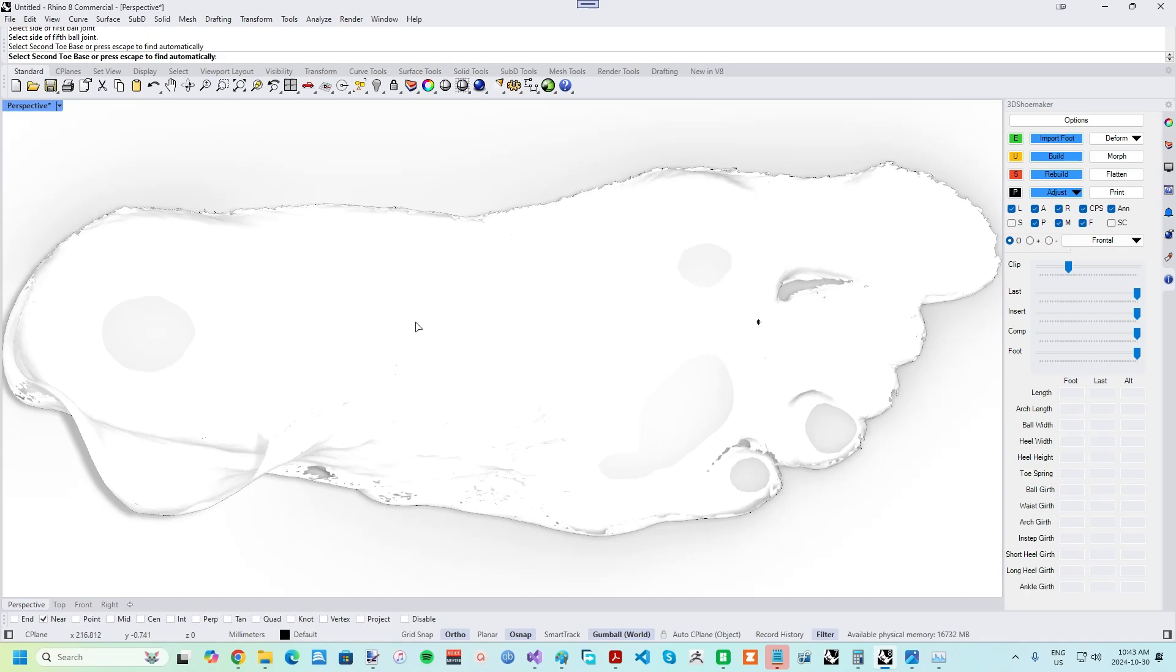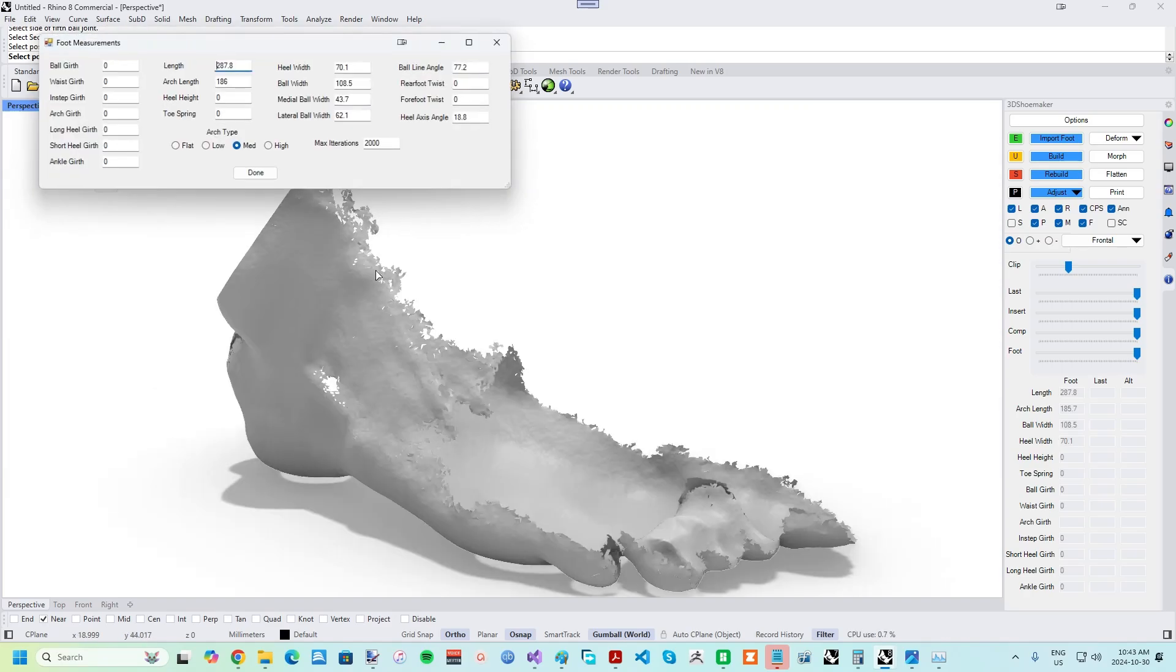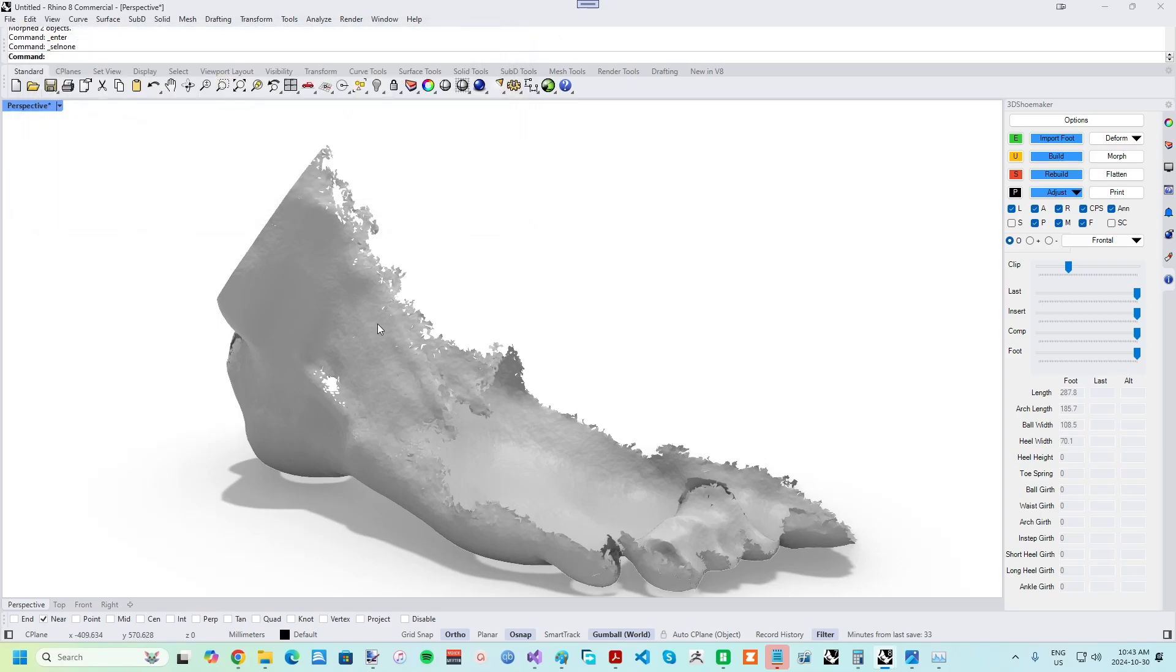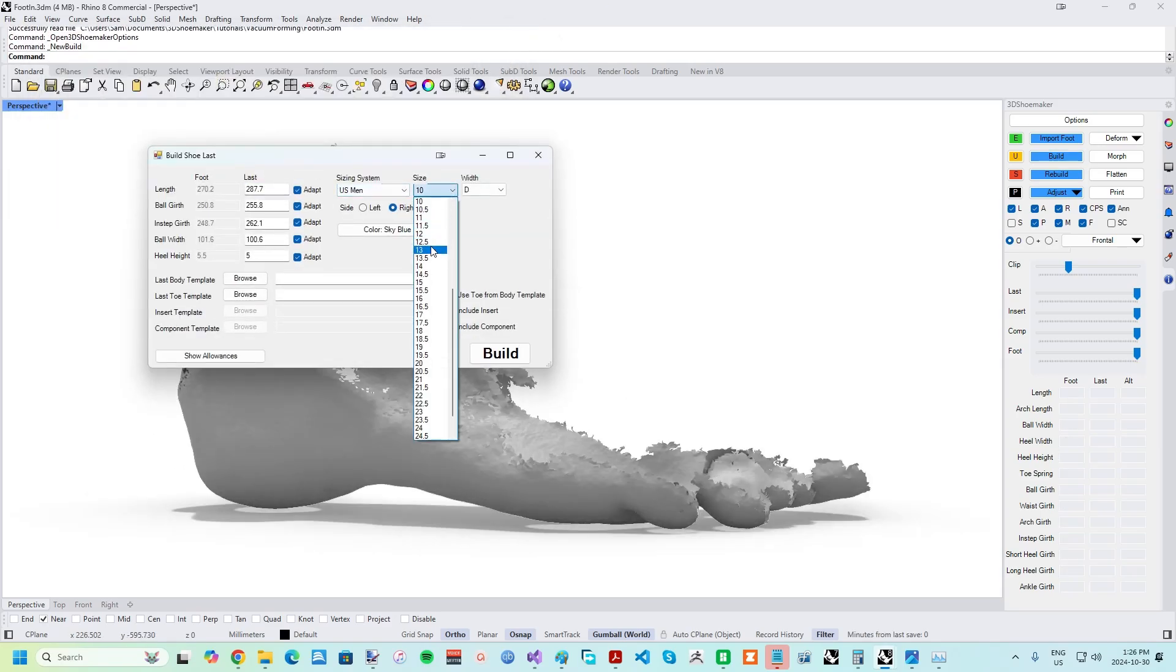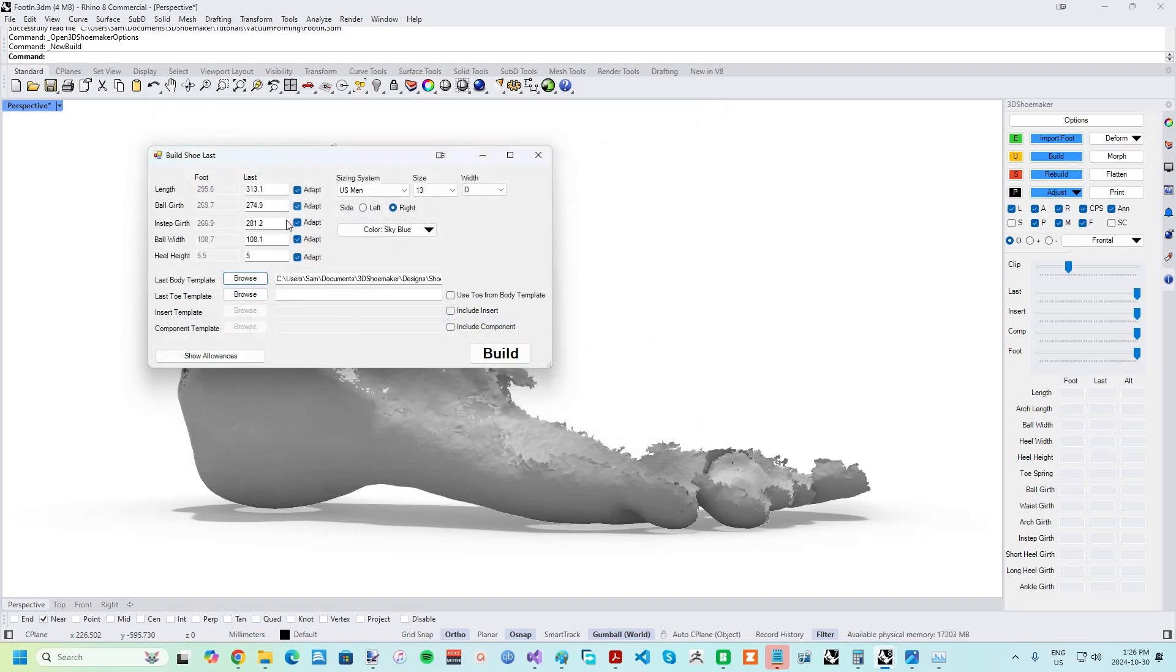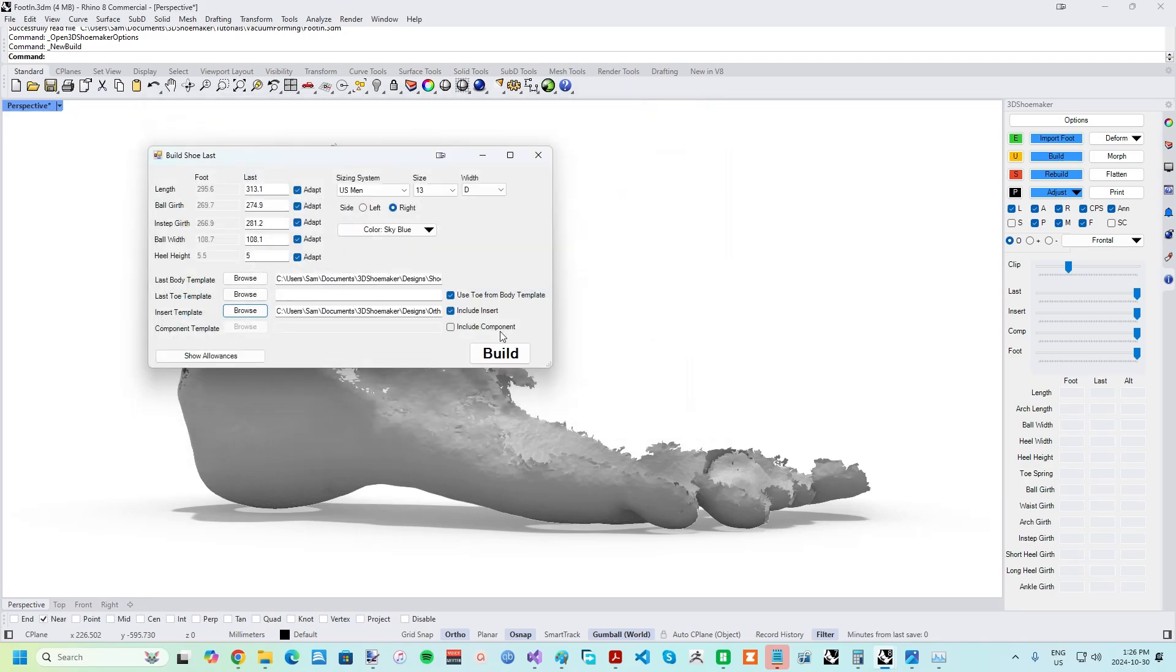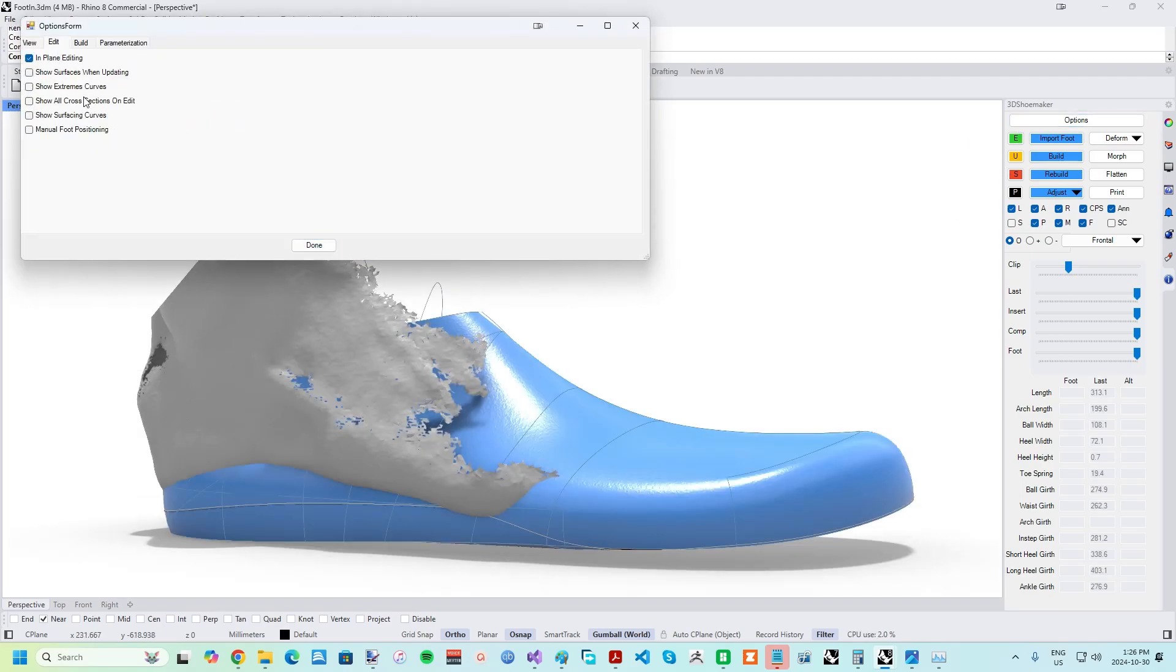The two measurements that might be adjusted at this point are heel height and toe spring, depending on the intended footwear for the orthotics. The next step is to get an orthotic into the session, along with a shoe last. To do this, press the Build button, select the desired shoe size, select Template, Parametric, Shoe last, and Insert files, and then press the Build button.